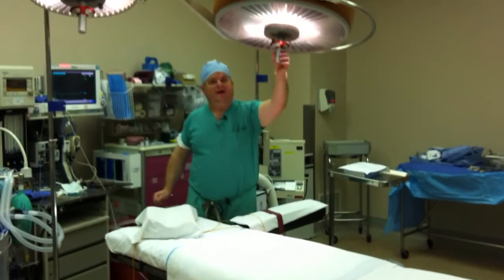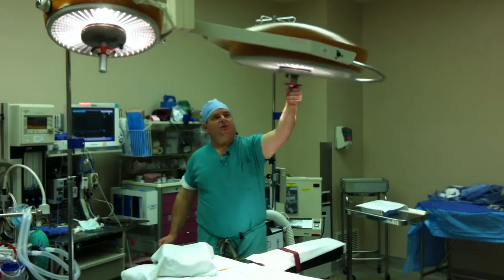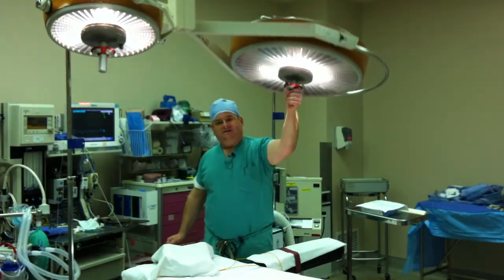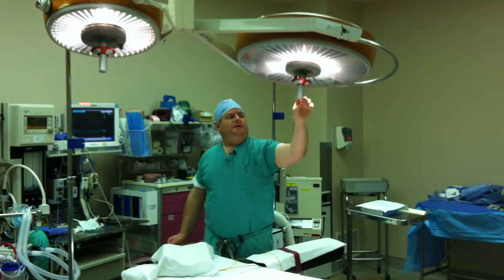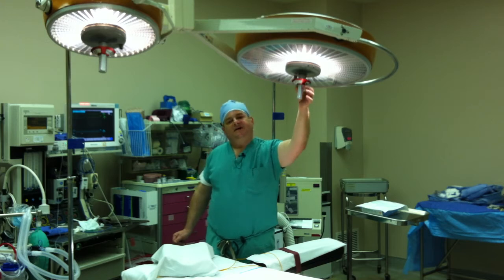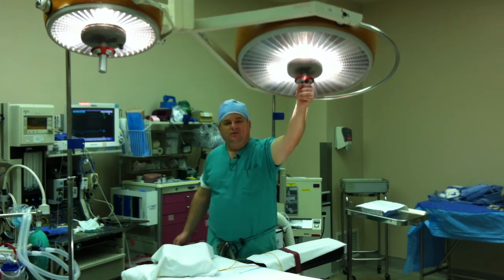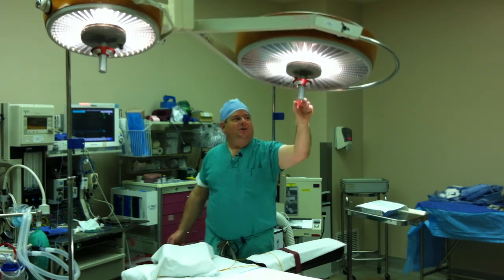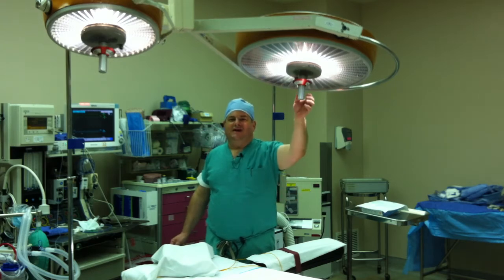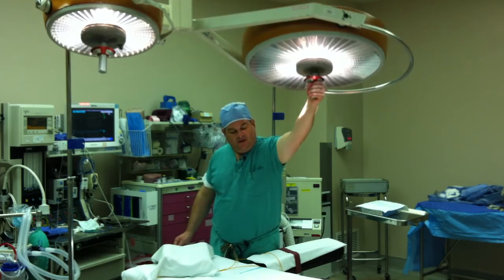And these are the operating room lights. These are high-intensity lights, and they're aimable so that we can move them around in all kinds of different directions to get the light right where we need it. These handles here, we have a capability of putting a little device on there that's a sterile cover so that we can, while we're operating, reach up with our sterile hands and move the lights without contaminating ourselves. We jokingly call those the light condoms because they fit over the handles to keep them sterile. But that's how we move the lights, and we'll adjust the light in the way that we get it right where we need it.